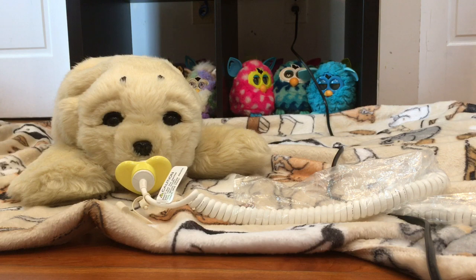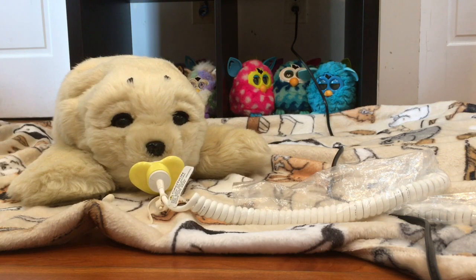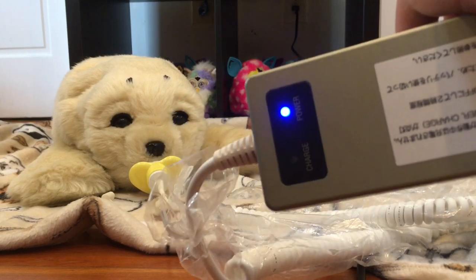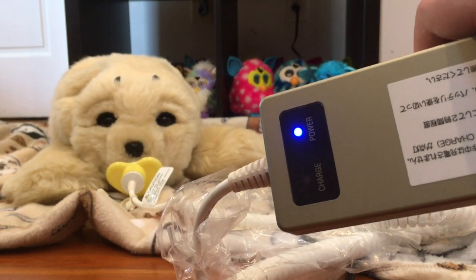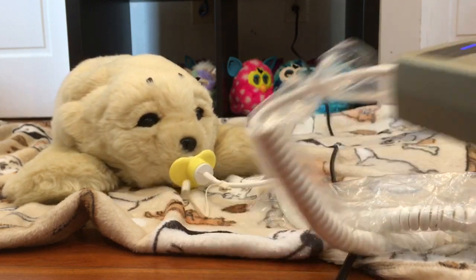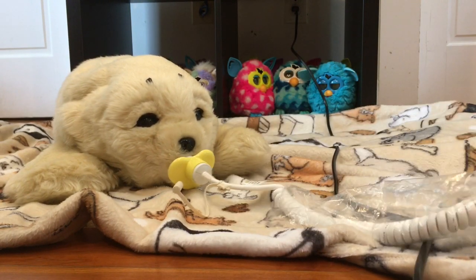You may notice that while it is running on the charger, the charge light here will not be solid blue and it will actually blink blue with PARO's movements. That is completely normal — that's just how it runs on the charger.